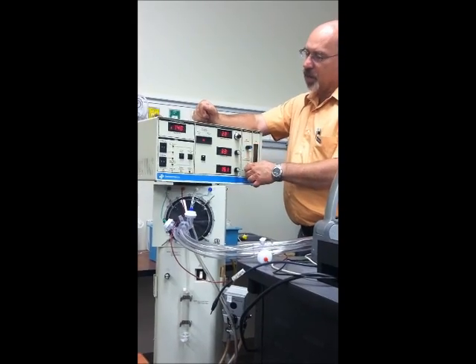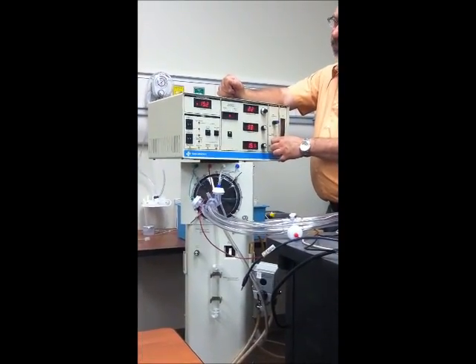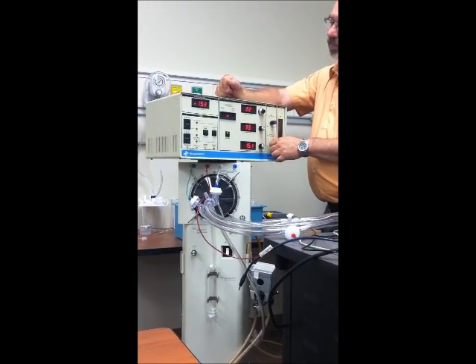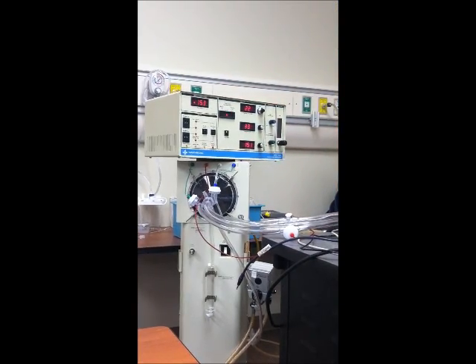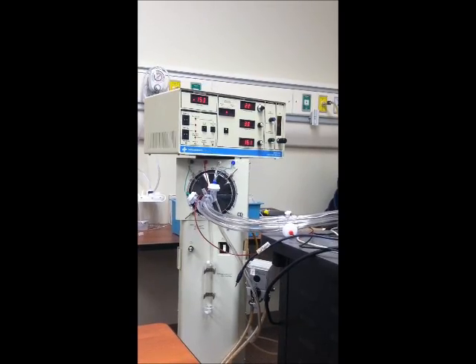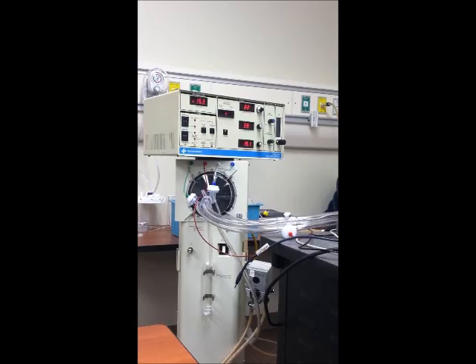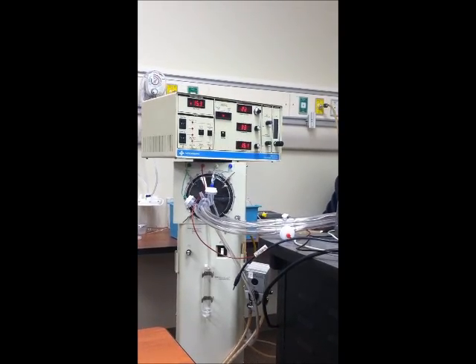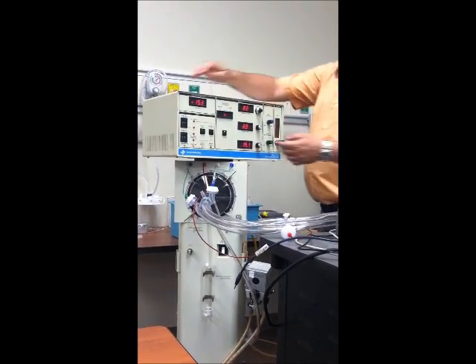All right, so now I'm going to take this up. Still not getting very good mean airway pressure. Now, how could I get 16 if I maxed out on my... Okay, then we might have to go to our bias flow. So, adjust using that, and then reset your limit. You may want to reset our alarms, but like I said, 16.